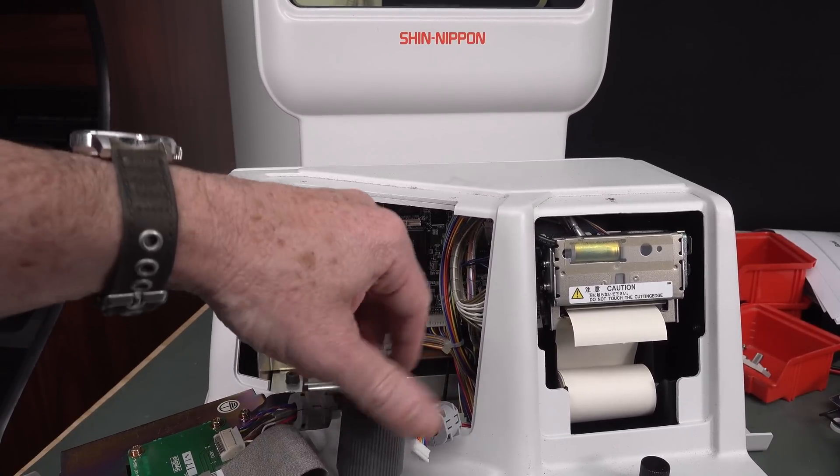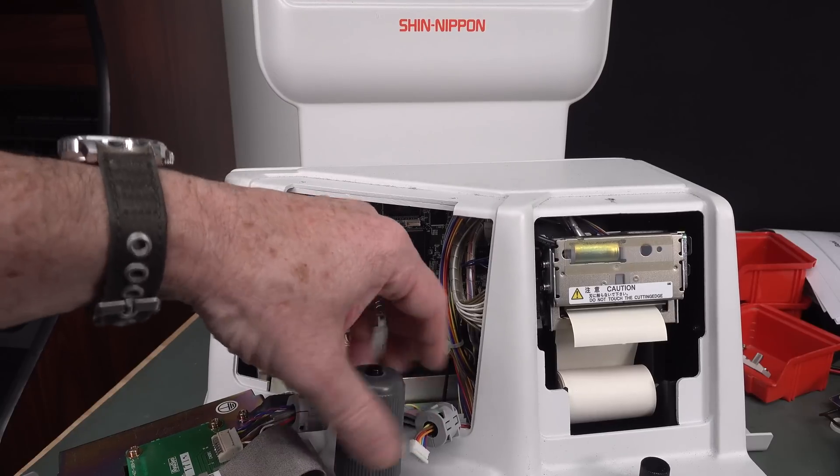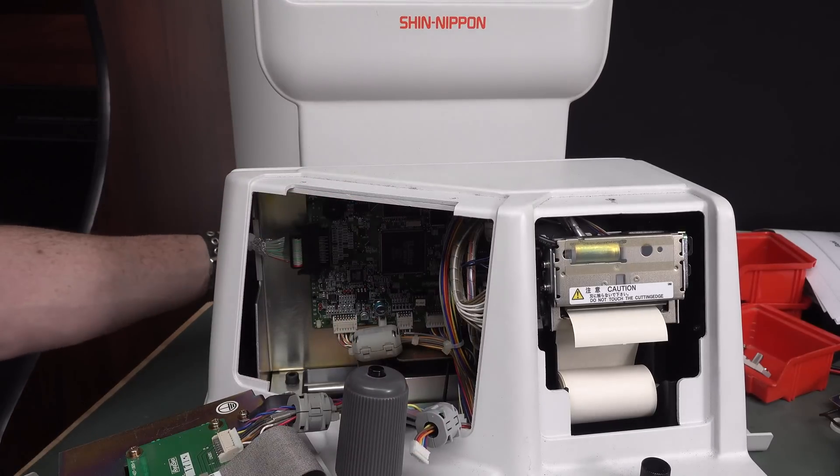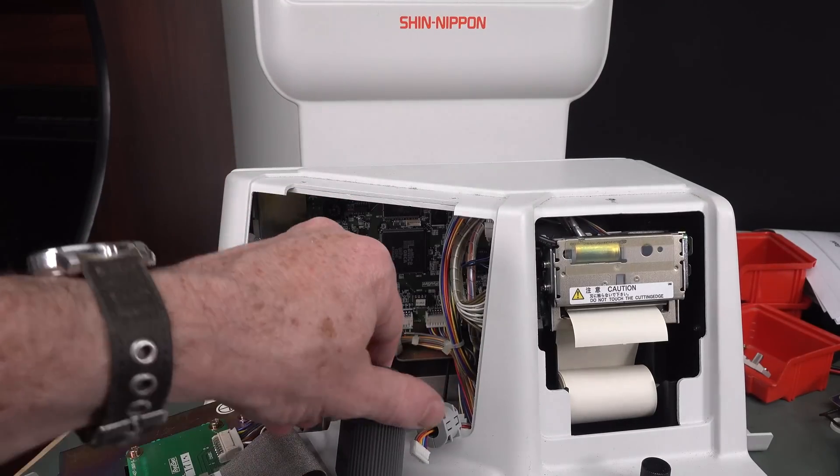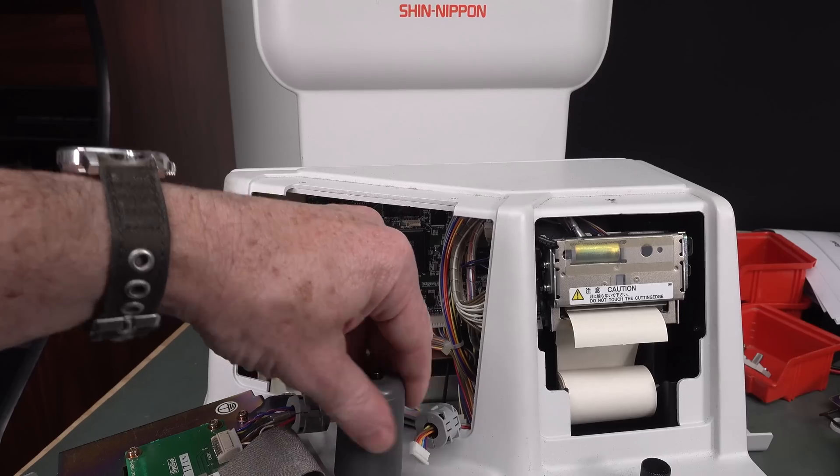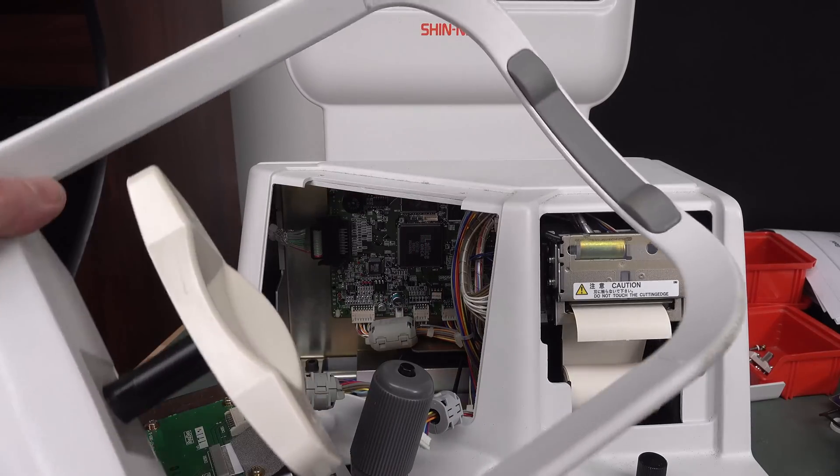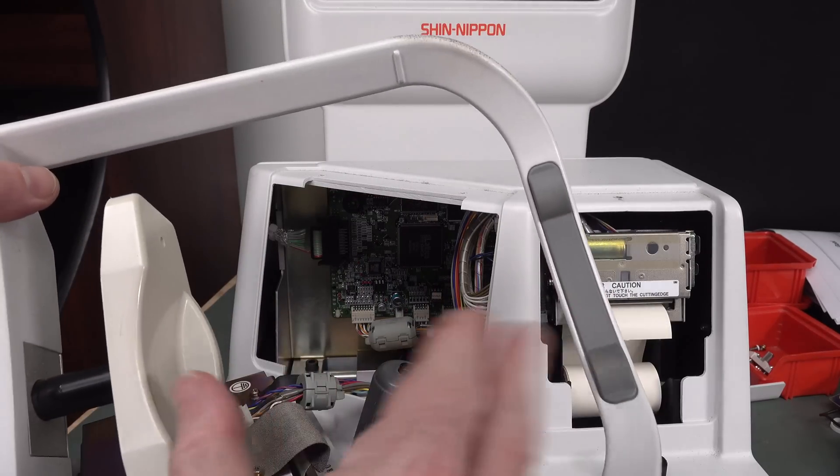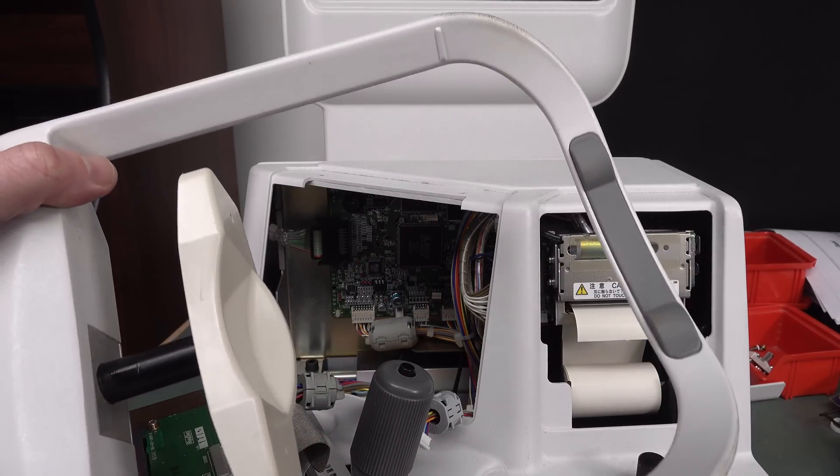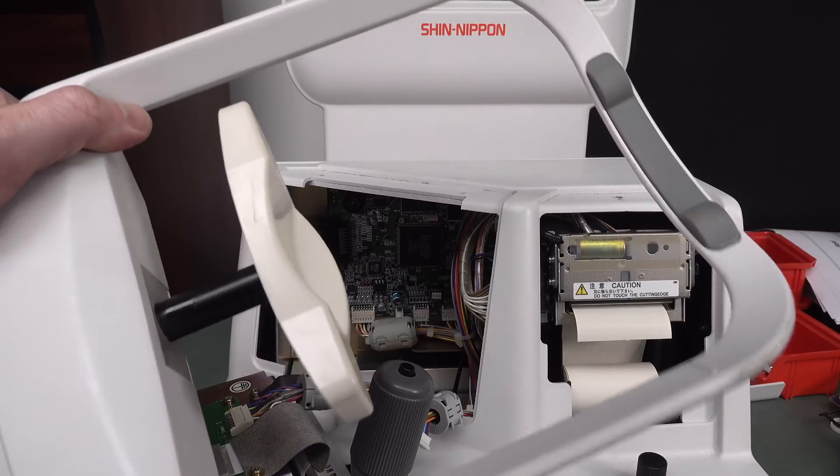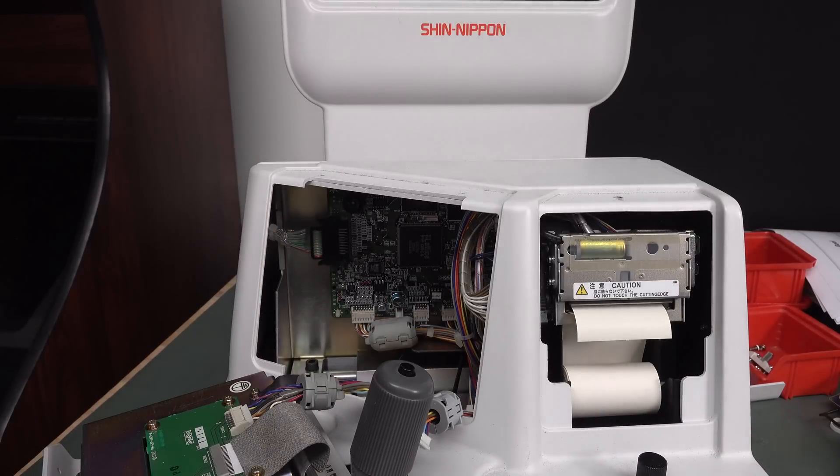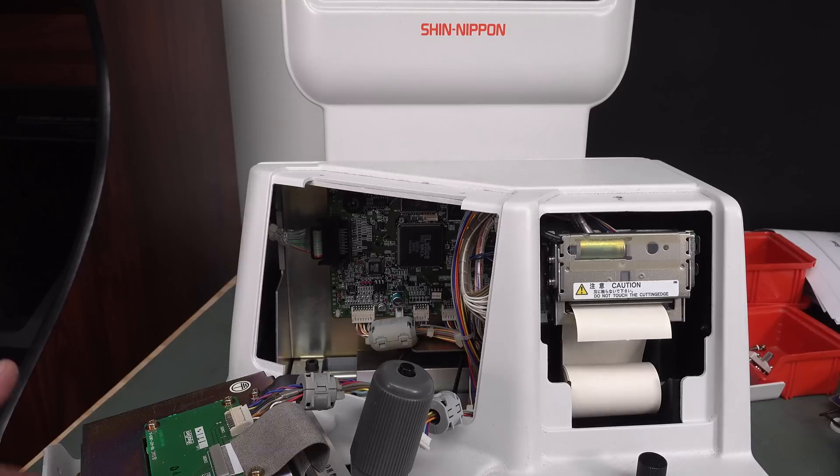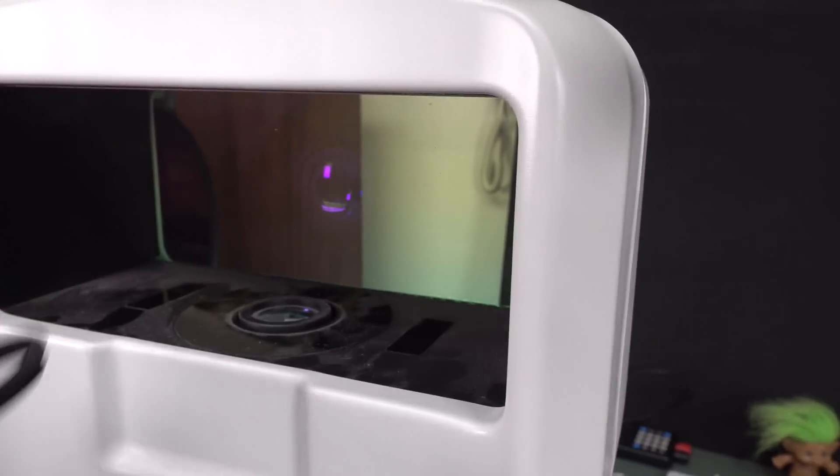So the operator can do that. Not just there, but they've also got the chin adjustment at the back. So you can raise the chin. Aha. So this chin thing here is only for people with different size heads. You know, you've got someone with a real massive head. Some engineer walks in and, you know, better lower it right down to the bottom.